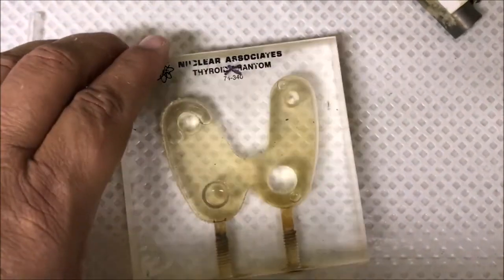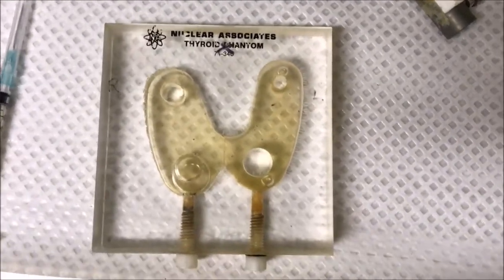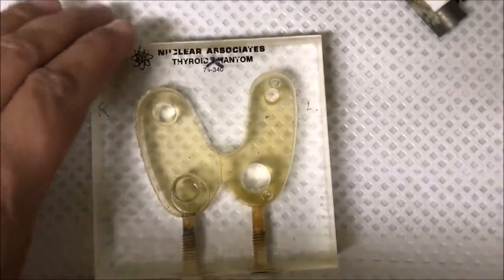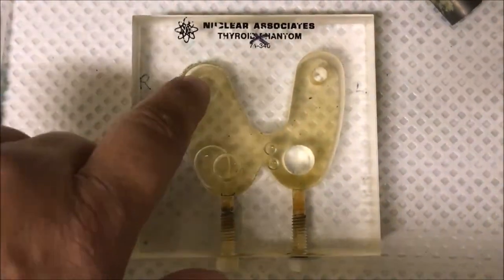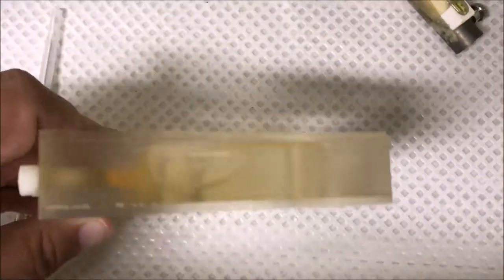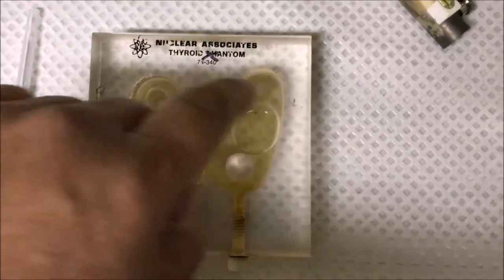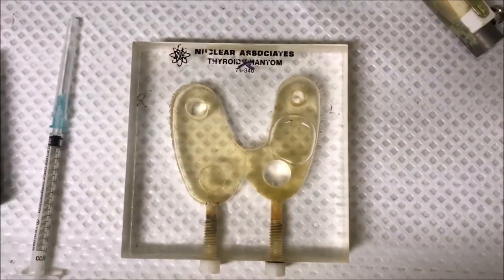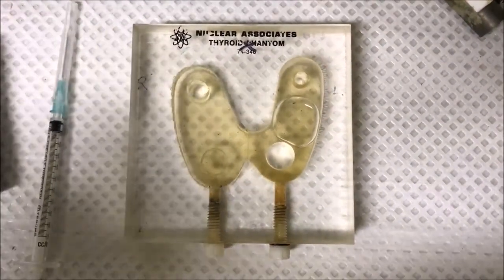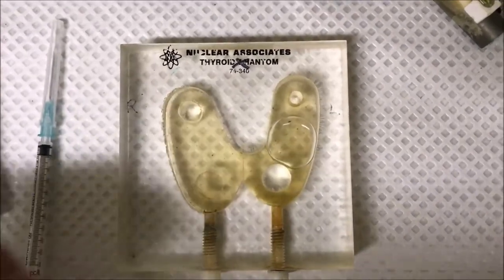One nodule is superimposed on that air bubble there. You can see that three of those nodules are designed to be essentially a hollow of activity — so they'll be cold. Within the thickness of the phantom, activity distributes through the fluid, but for these three nodules the Perspex goes all the way through as small cylinders of different sizes, so there'll be no activity there.